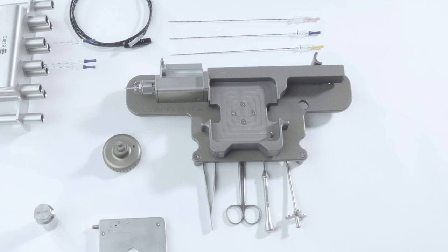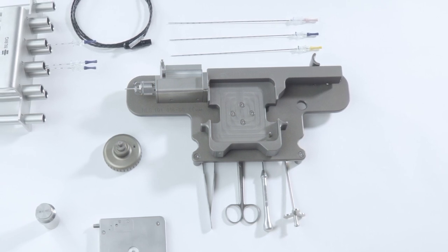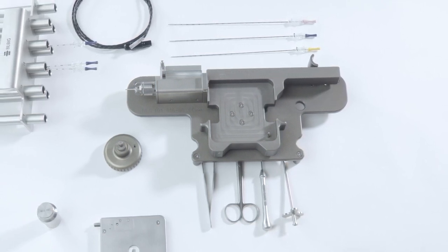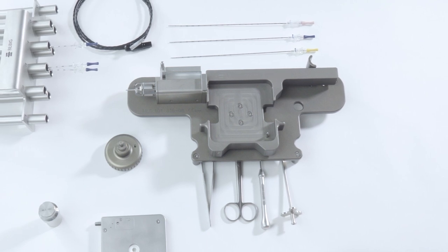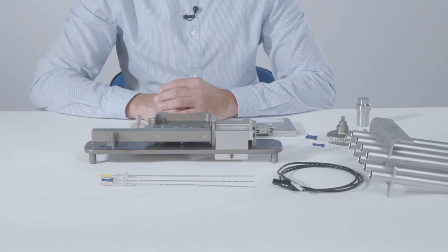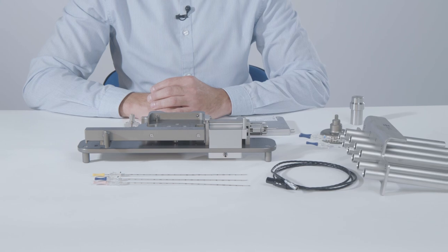Next I would like to show how to use the needle loading station for configuring the seed chain and loading the implantation needles. After sterilization place the needle loading station and the accessories on a sufficiently large and sterile workstation. We recommend the arrangement shown here.